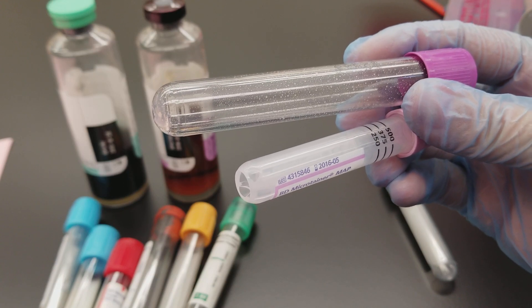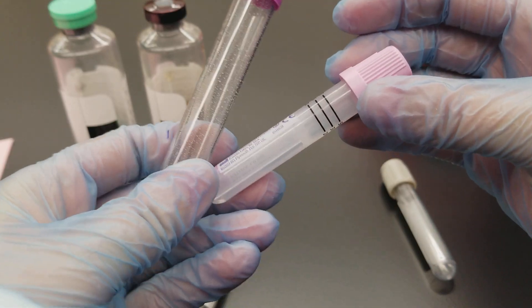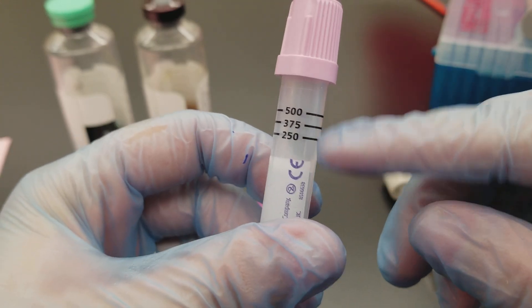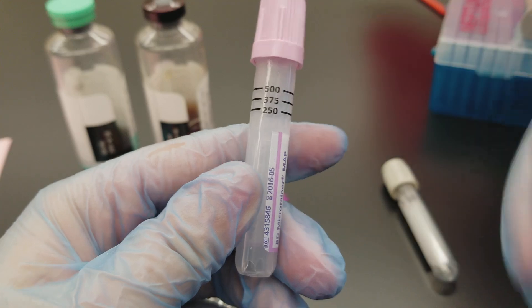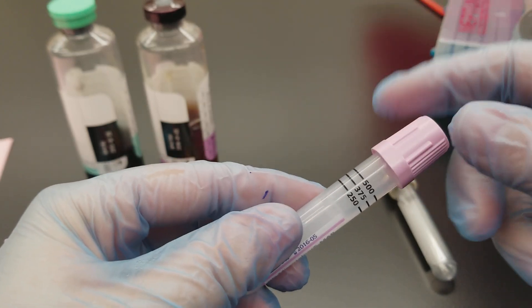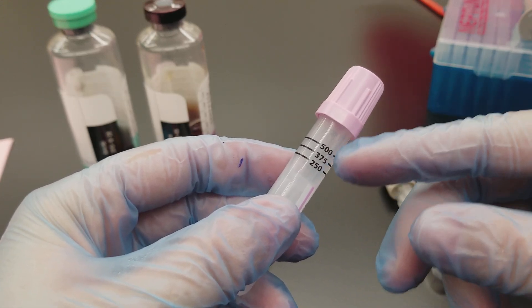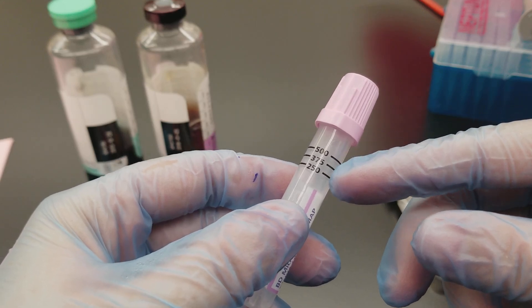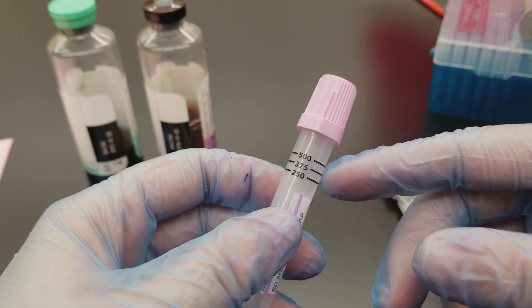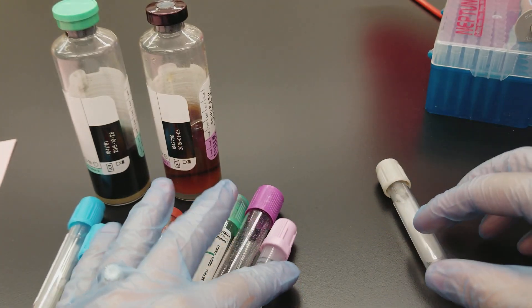We're preserving the cellular morphology and inhibiting platelet clumping using EDTA. The bullet tube — the smaller tube inside the larger one — is usually used for babies. Be very careful and don't constantly cancel baby specimens, because they are highly affected by how much volume is taken out, and it could hurt them fatally. Do as much as you possibly can off of any bullets that come down, whether they're chemistry or EDTA, because that baby is needing those results and is highly affected by the loss of blood.